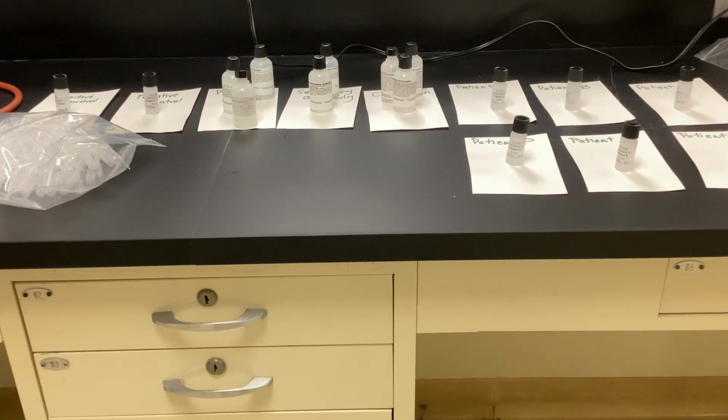So what's your scenario for Patient A? Western blot. She went on a hiking trip. Felt feverish and achy. So with Lyme's disease, we'll look for a bullseye rash, fever, malaise, things like that. So when you're reading through all of these case scenarios, if these were patients, we'd say, well, from what they're telling us, they have malaise, they have a rash, they were hiking, they were camping. One of them said their friend had it. So there are all possibilities where the person might have it.